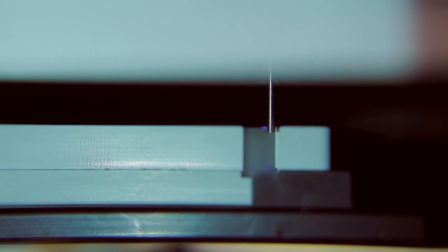Using your flashlight again, look at the inside of the microplate platform at the MCV plate. The needle should just touch the MCV plate at the bottom of the cutout. Readjust the needle height if necessary.